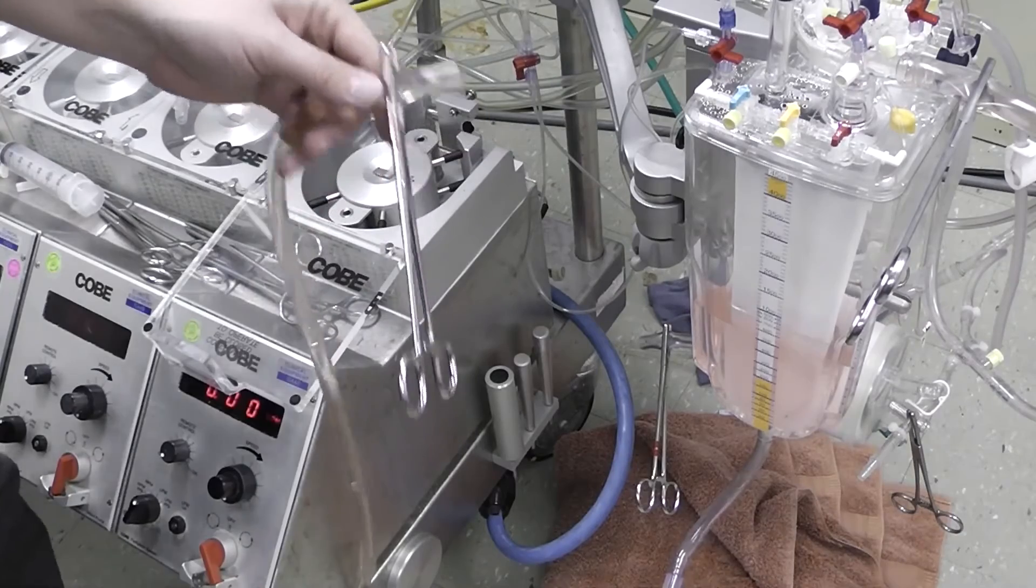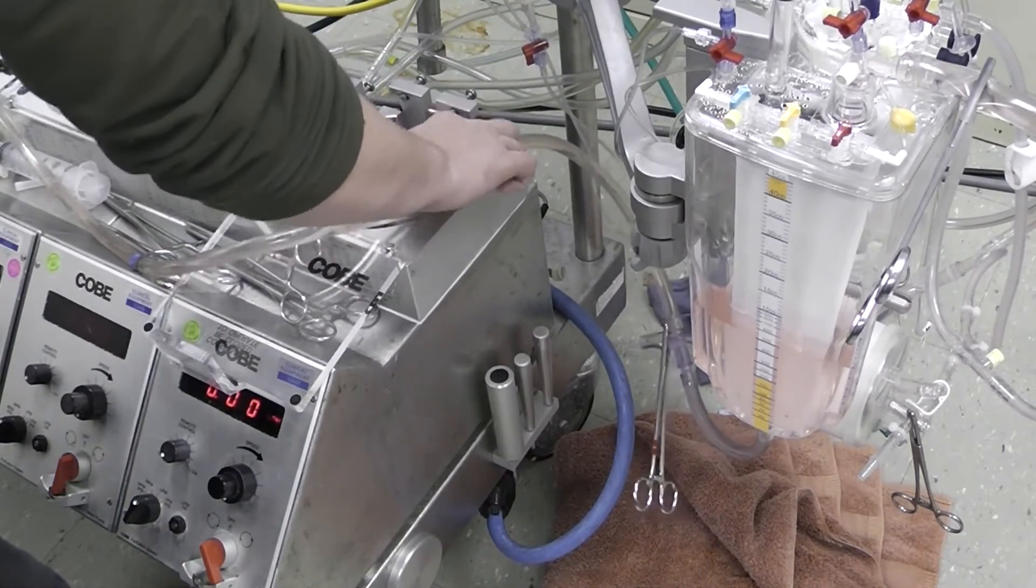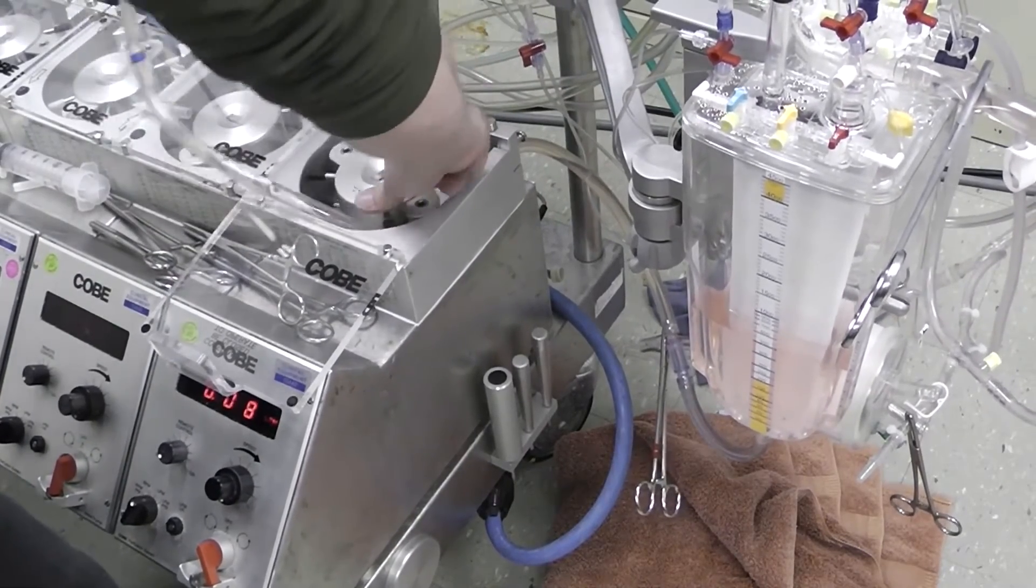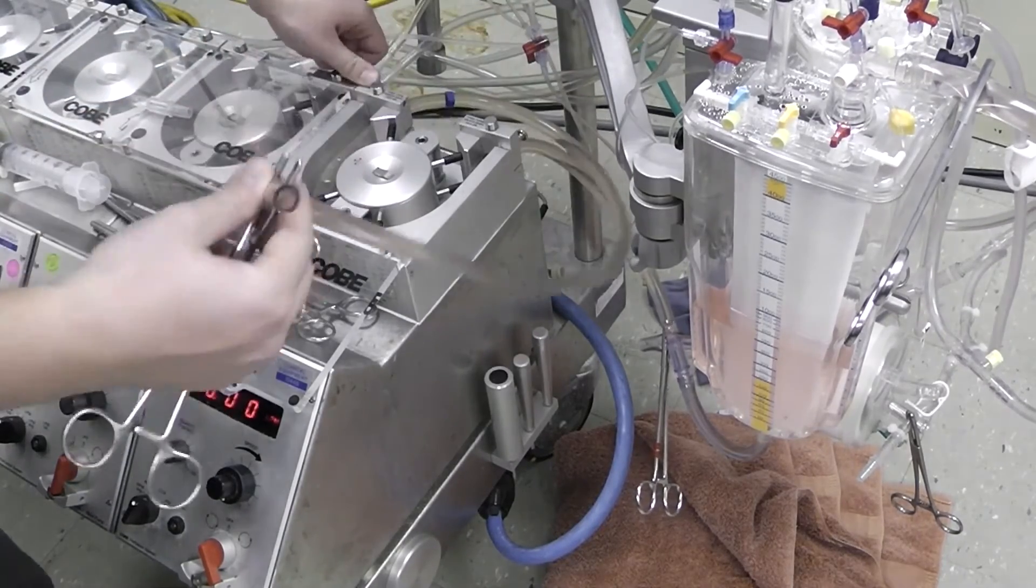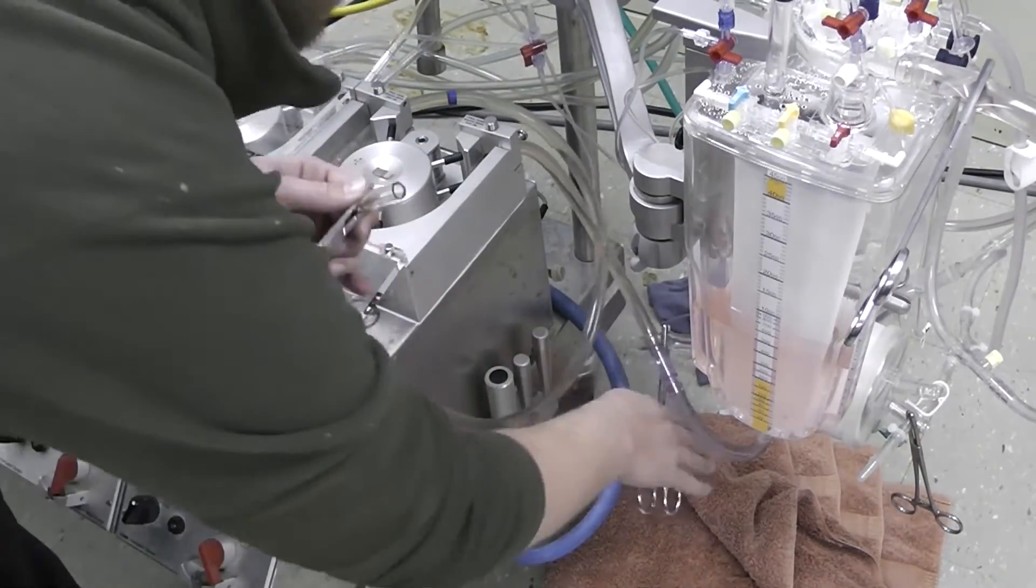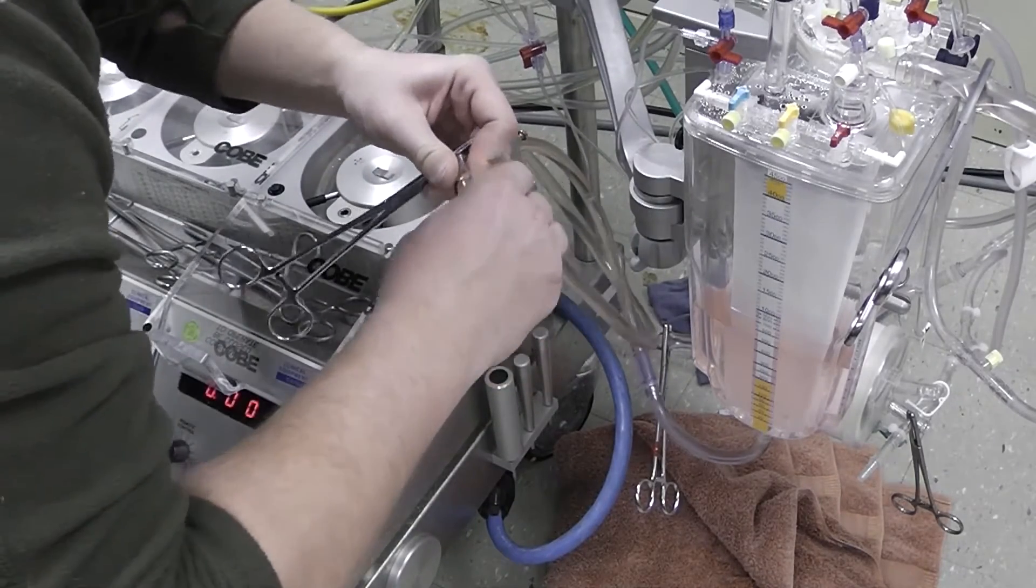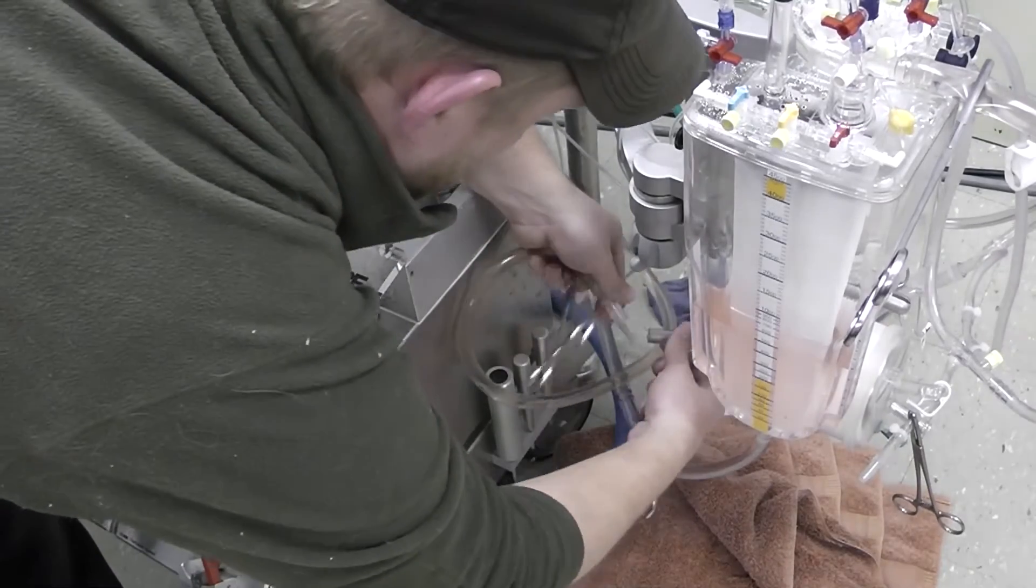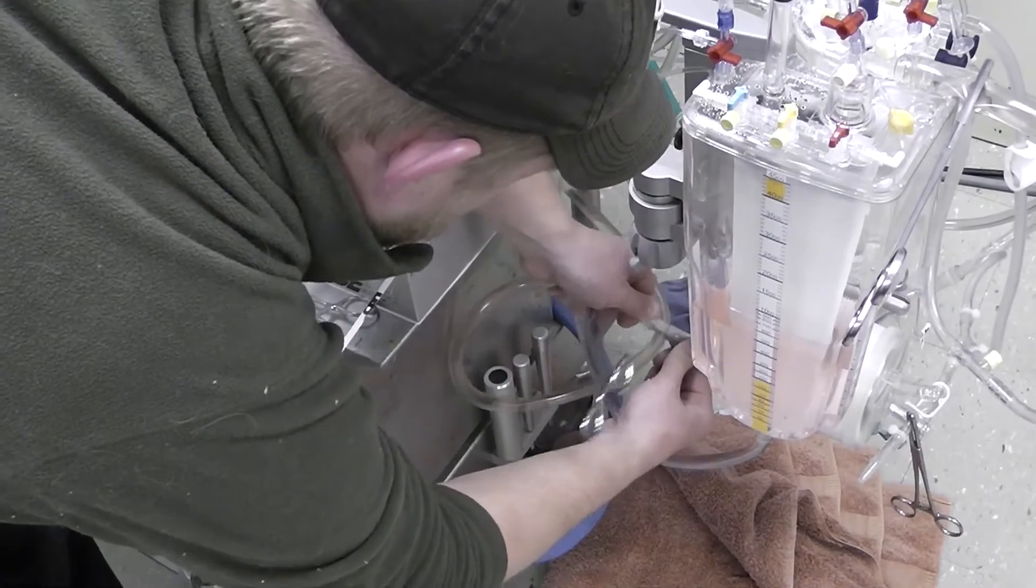All right, so this is fluid filled now and I'm going to put this into the pump head, and I'm going to attach the other end with another connector, again keeping this sterile, to the inlet of the oxygenator here.